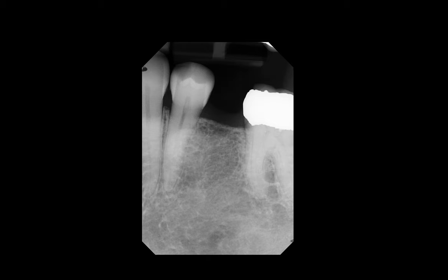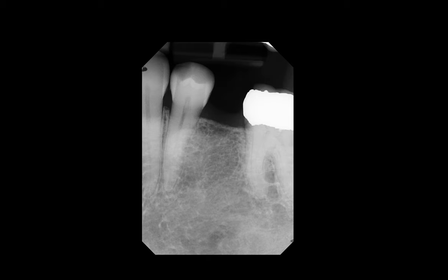Hey guys, how are you? This is Dr. Kim. So today, why don't we together evaluate this edentulous site that's going to be receiving a dental implant.